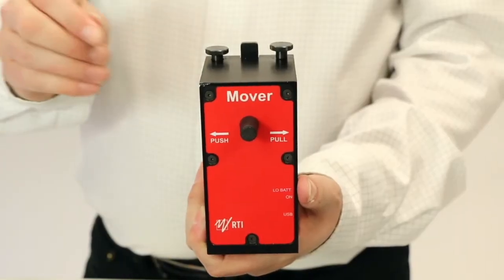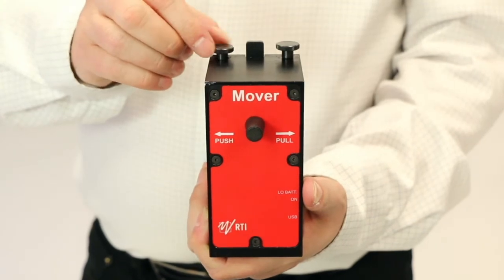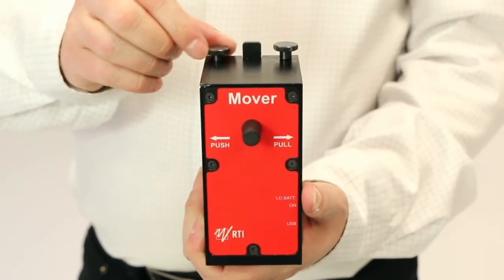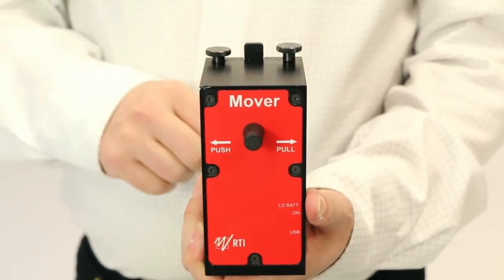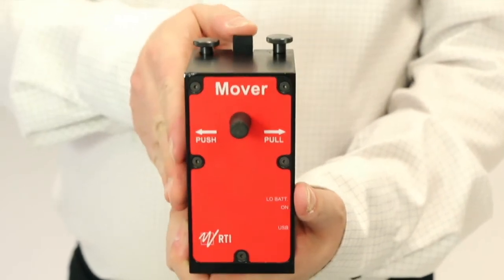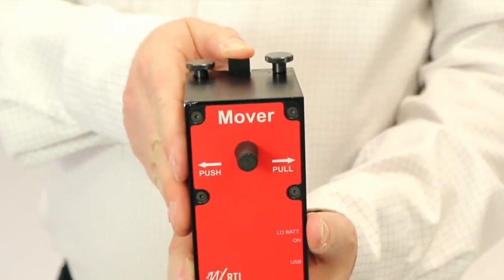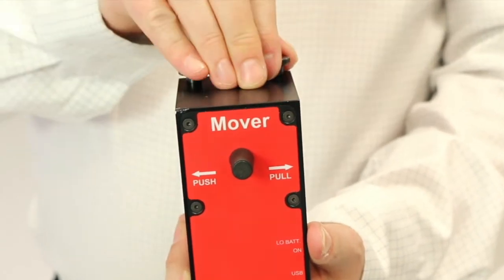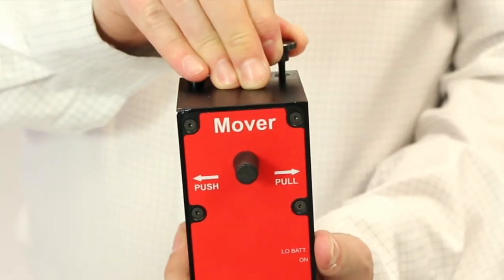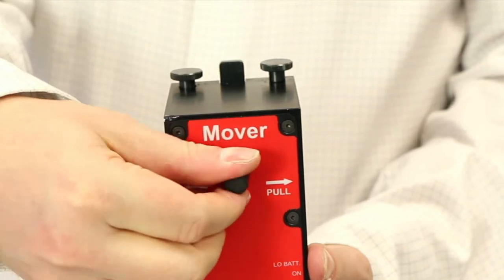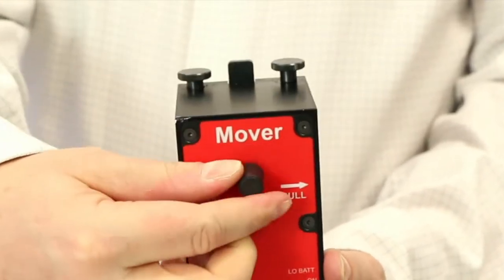The mover has four controls. A screw to attach the plastic tube used for supporting the CT dose profiler during free in air measurements. A release button to insert and release the wire inside the mover. A spring loaded pin to attach the protection tube. And a knob to manually move the wire.